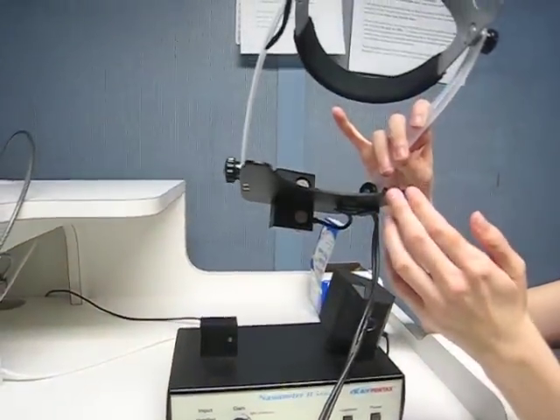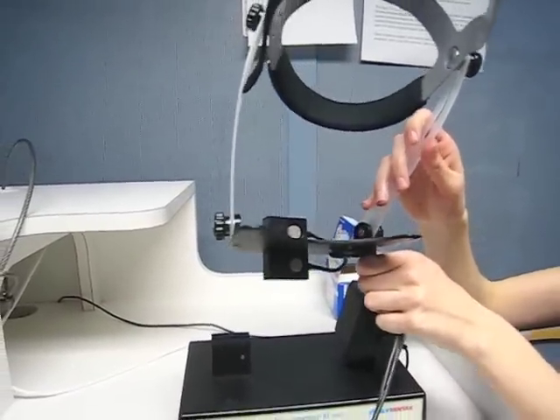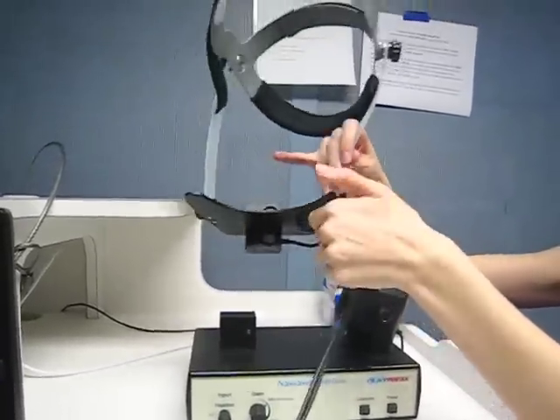This is the separation plate. The headset sets vertically with the microphones facing the speaker.